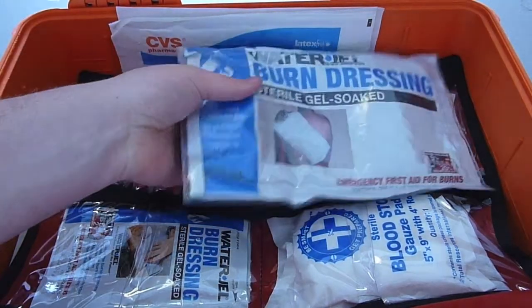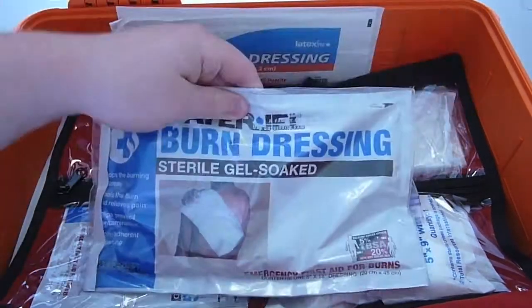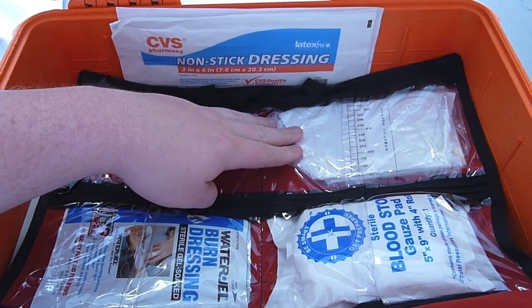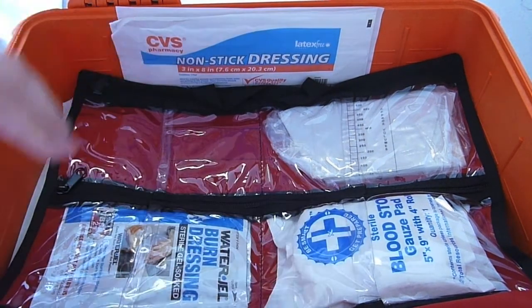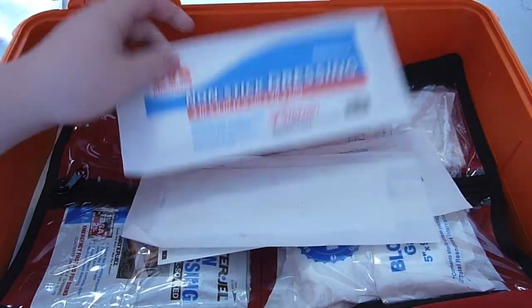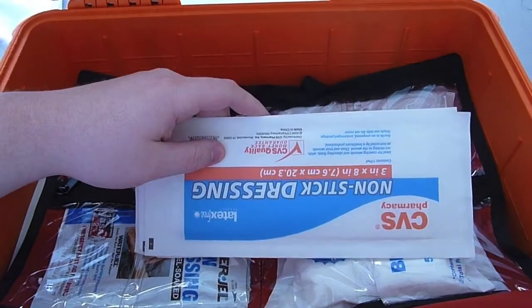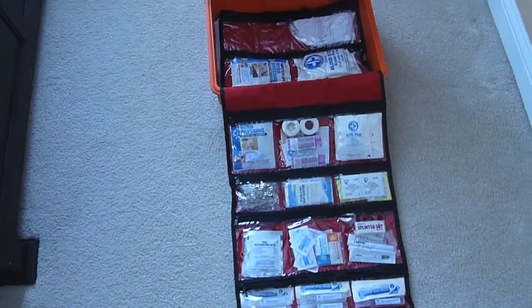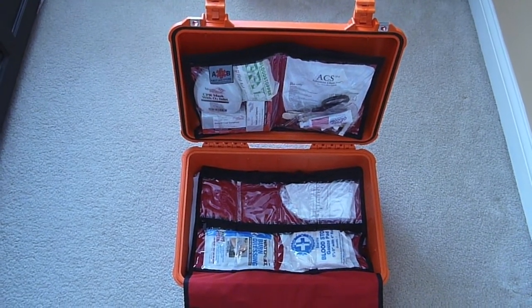Back here I carry a very large water gel burn dressing inside a plastic zip-lock bag, should the foil pouch break so it wouldn't go everywhere in my kit. I also have some vomit bags which also measure the amount of fluid lost. I have a very large blood stop gauze pad and another small burn dressing from Water-Jel. I choose to keep three of these non-stick dressings, which are great for putting over a wound. Here is what the organizer looks like all stretched out — everything is extremely easy to access, and it folds right up into the case. You can also see the top part in the lid of the Pelican case.